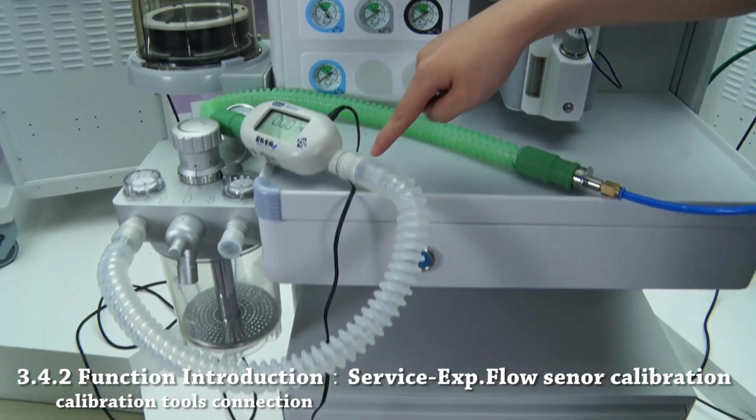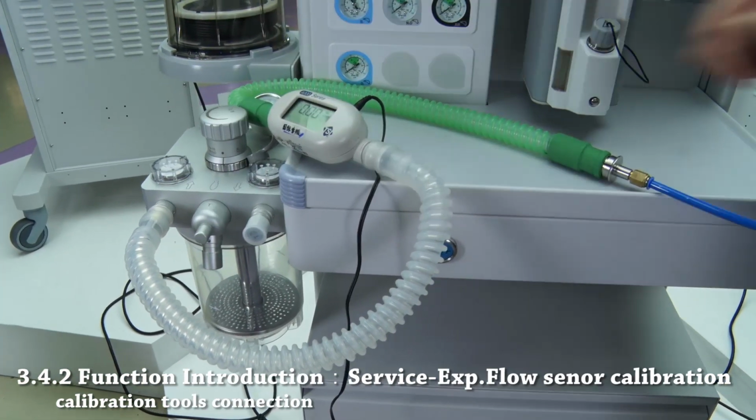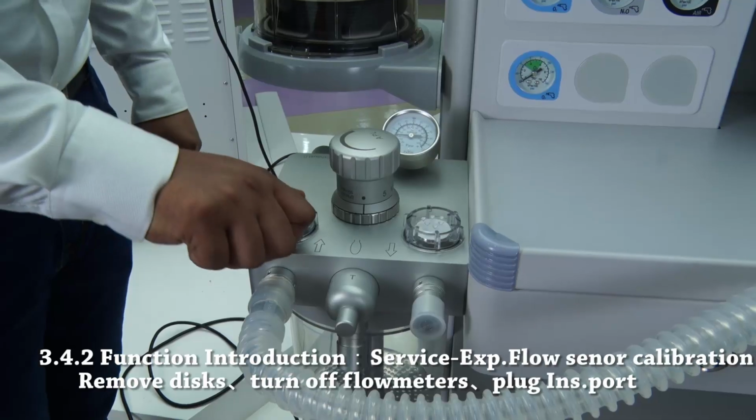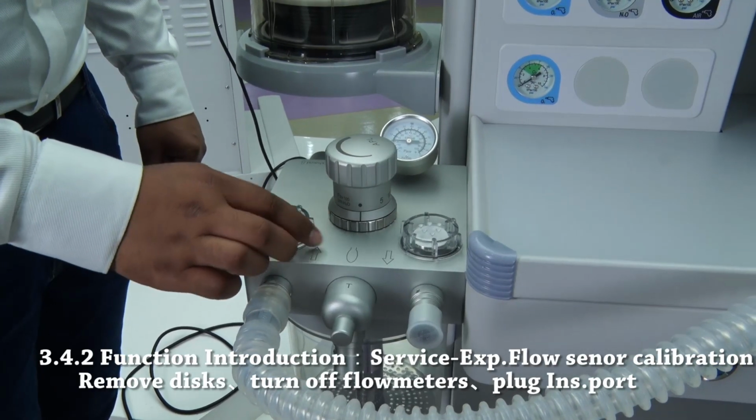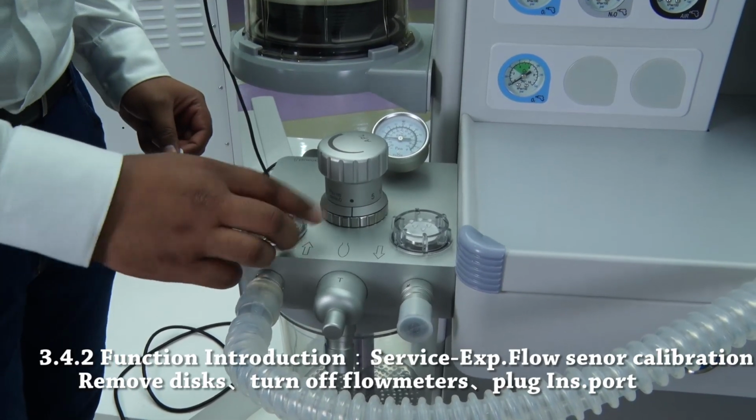Please be aware that this calibration is different than calibration of the inspiratory flow sensor. Make sure to remove discs, turn off all flow meters, and plug the inspiratory port.